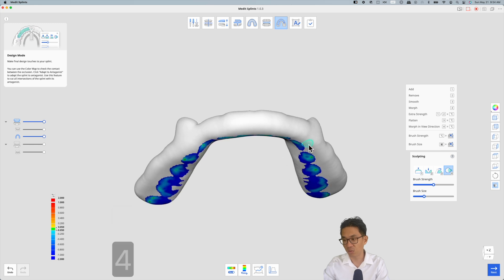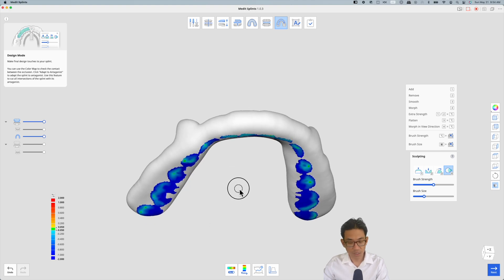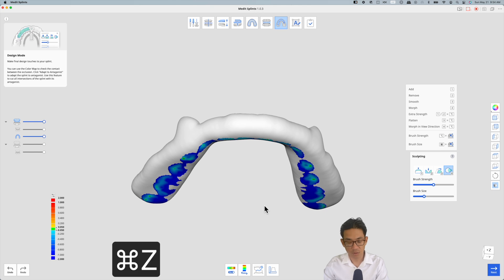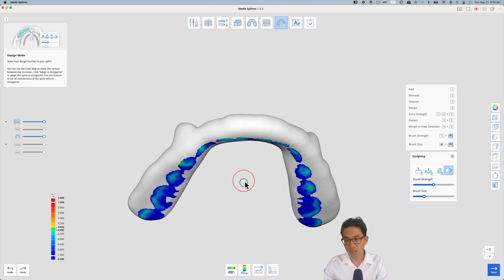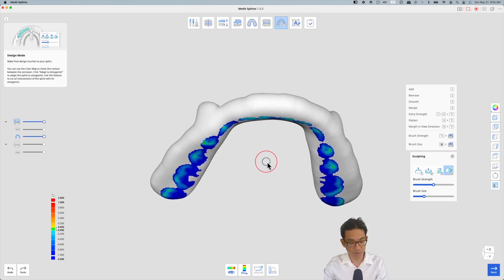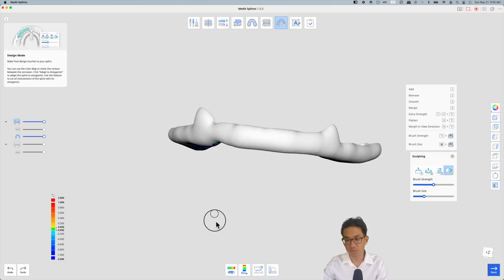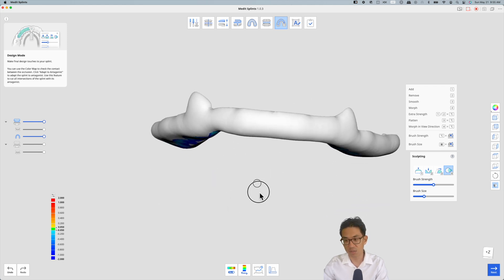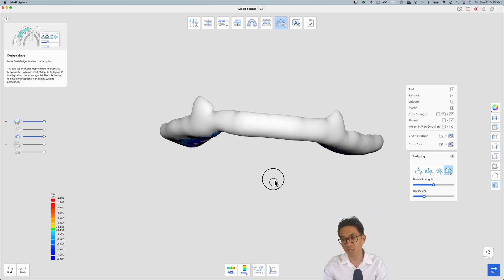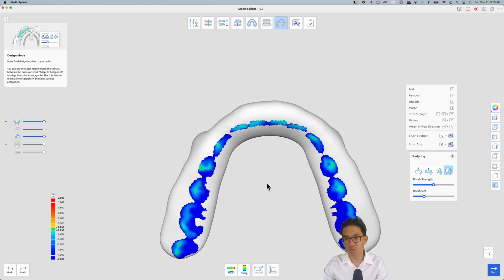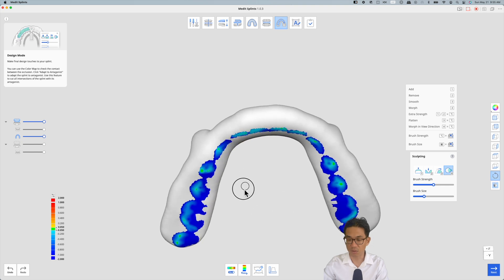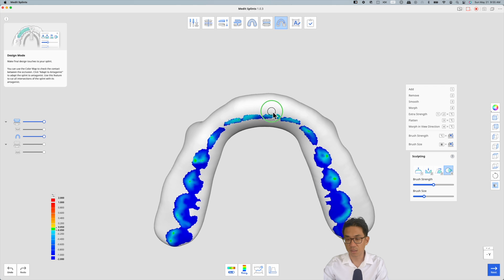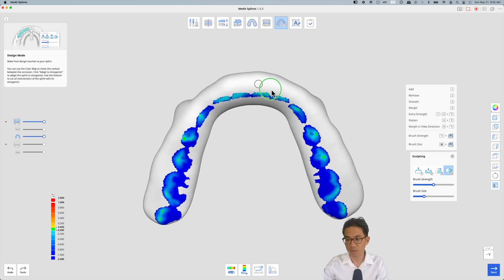For some shortcuts when you are working with the models, you can hit Command to drag the model around, hit Option to spin it around, and Shift to mouse click to move in and out. That's also important when you're in the initial tool where sometimes you have to click this to really spin around the STL file. In this case here, I'm right clicking just to drag and such.